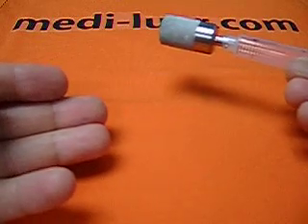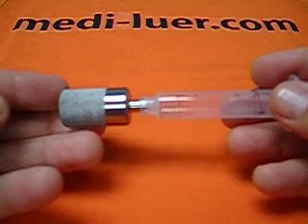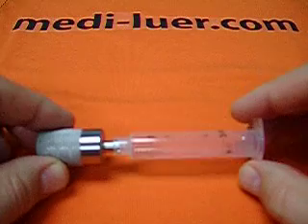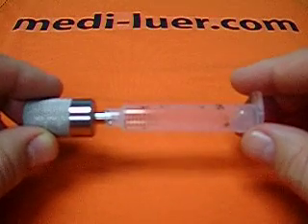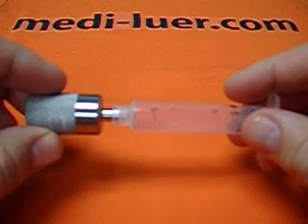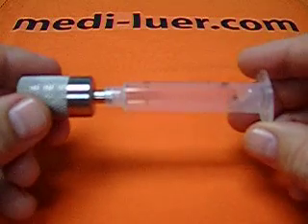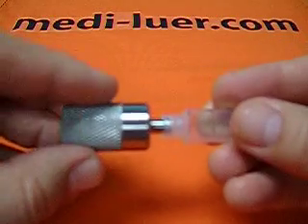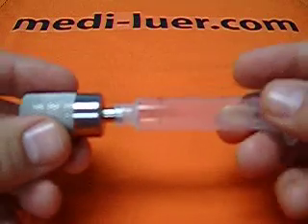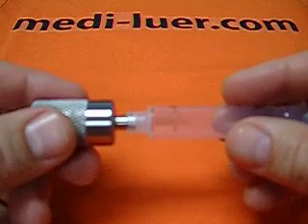Once you have that machine in place, you'll be able to assemble these fittings, prove your assembly is per the standard, and move on to other tests without having your test invalidated. Your customer, your suppliers, and any regulatory bodies looking at your test procedure will be interested to know this — especially if you cannot validate the force and the torque applied at the same time. These fittings are set up so that if you put on more force and more torque, you have a good probability that it's going to seal.